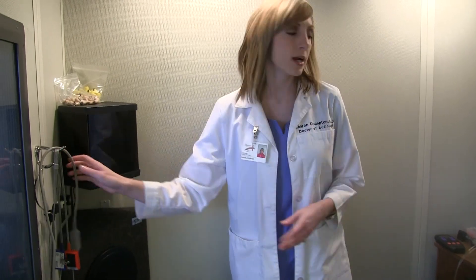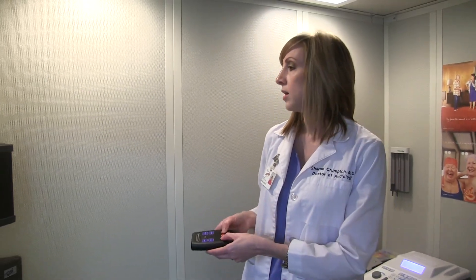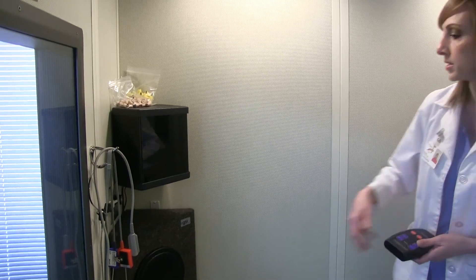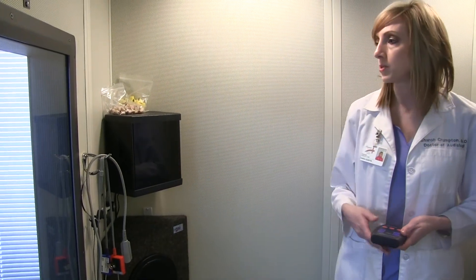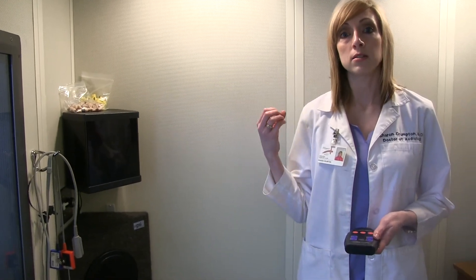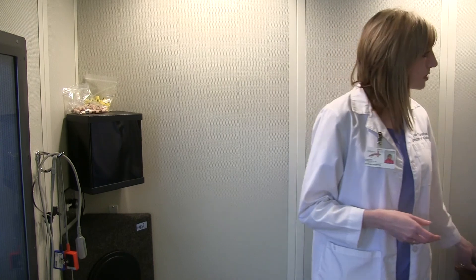One of the things that I also do is test small children and babies, and we do that with visual reinforcement audiometry. You can see in the corner there's a little toy. Every time a sound comes out of the loudspeaker I present the toy, so the child is conditioned to know when the sound comes on. They turn their head because the toy is about to come on. But this is what it's like inside of a sound booth, and this is where you'll be sitting if you come to see me.